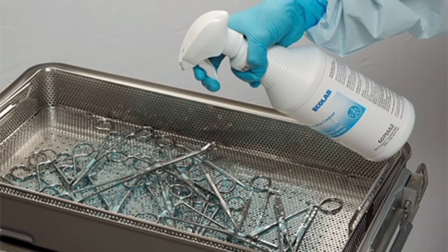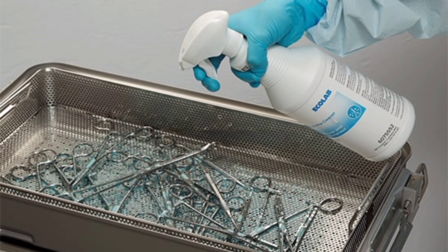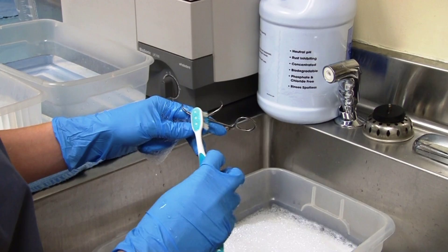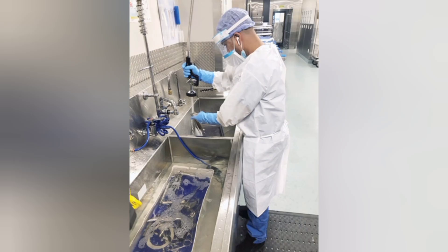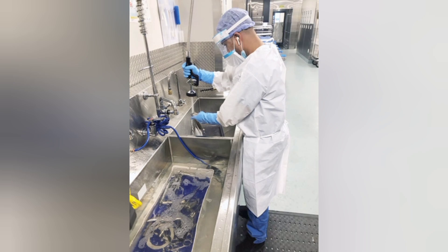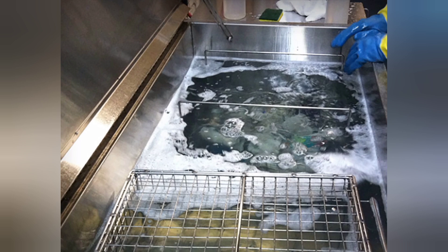The second step is cleaning, which includes soaking, washing, and inspection. First is soaking: if any instrument or surgical tool has a lumen or complex design, it can be filled with debris, or if devices are very bloody and cannot be rinsed or wiped at the point of use, soaking is done. Second is washing or disinfection: detergent may be used for washing if it is compatible with the instruments. A washer or decontaminator is used, and an ultrasonic machine is also used to remove fine soil from surgical instruments after manual cleaning.